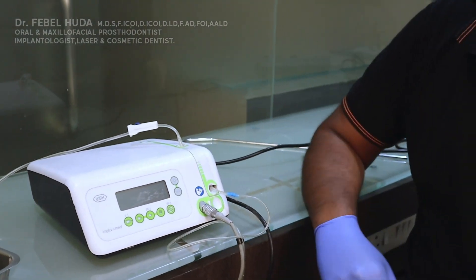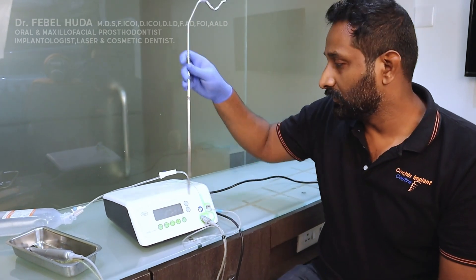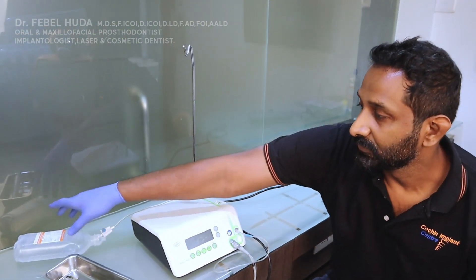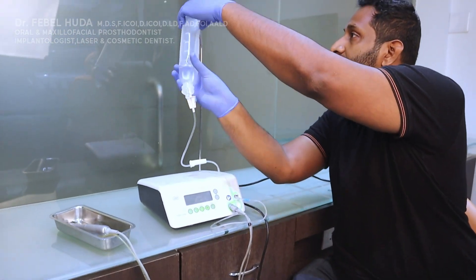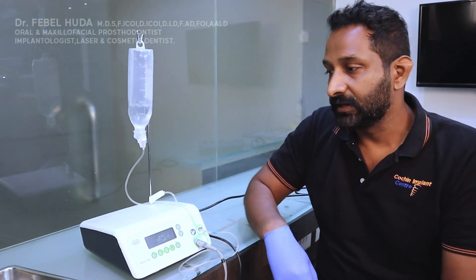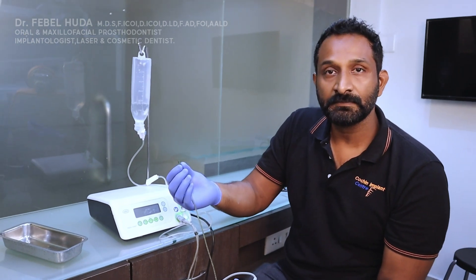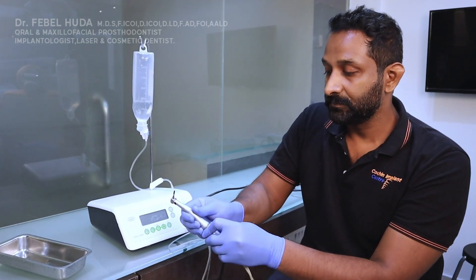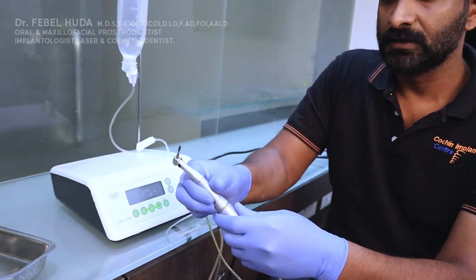Once the saline tube is engaged, you press it down and it's done. There's also a stand used for suspending your saline bag. You suspend the saline on top of the stand, and then the saline cable runs down and connects into your handpiece.